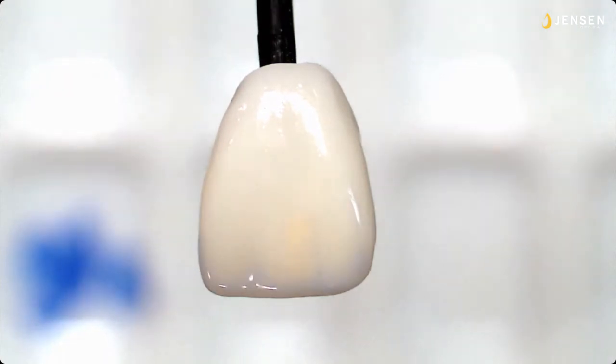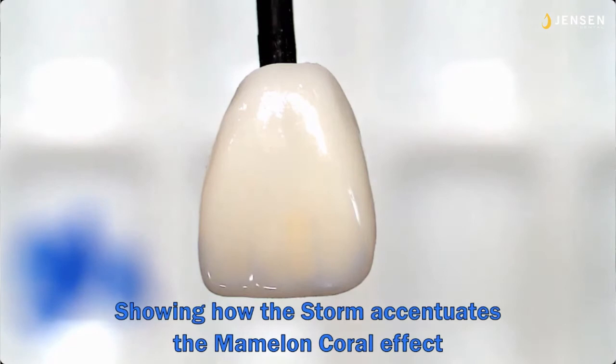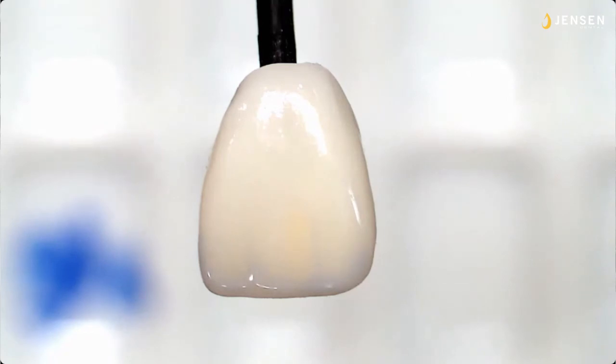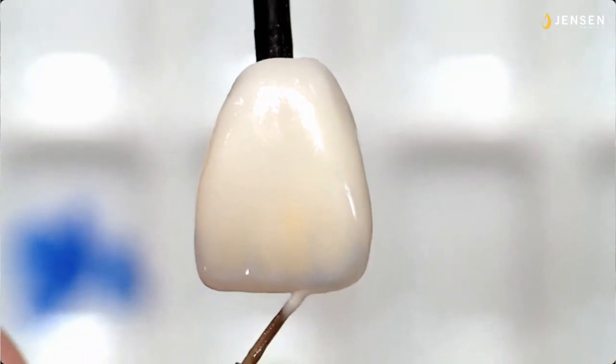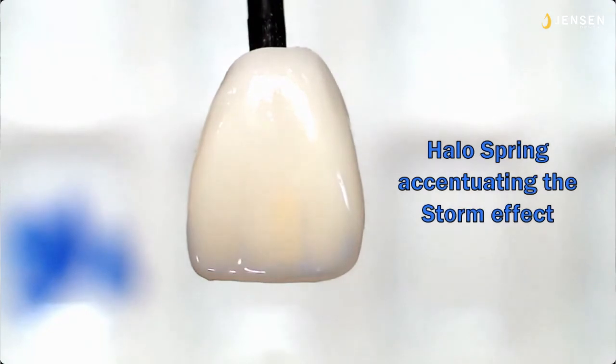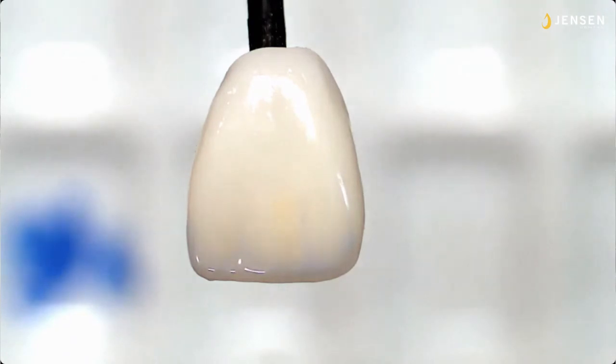So here I'm adding a little bit of a coral mamelon. Now, coral is about the intensity of a ripe peach flesh. So showing the storm how it accentuates the coral. And it's very interesting to see how it sets it off, because if you just had the coral sitting there by itself, it wouldn't have the pop. And here's a little spring, halo spring, accentuating the storm effect. So you can see around the edge where it's got a little bit of a glow there.